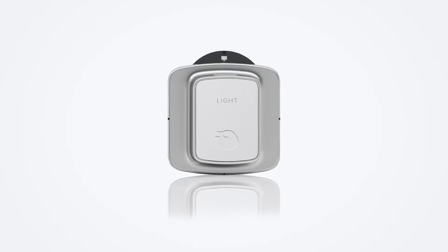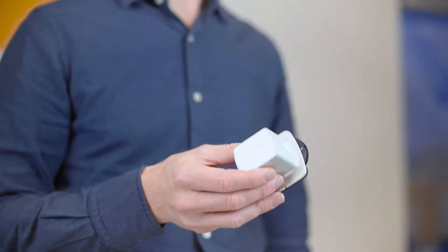The primary application of the light sensor is to calibrate medical displays according to AAPM's Task Group Report 18, for example. The X2 light sensor measures both luminance and illuminance and offers the accuracy needed on the whole scale as required in standards.